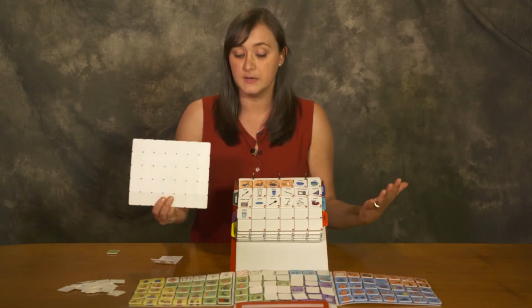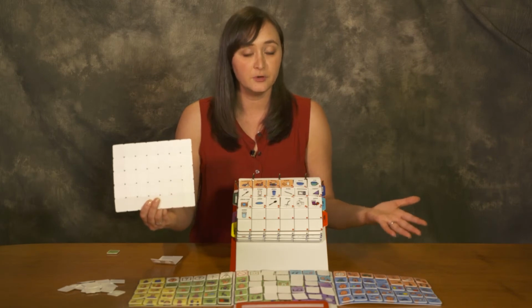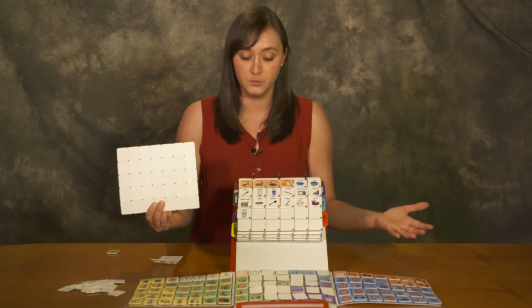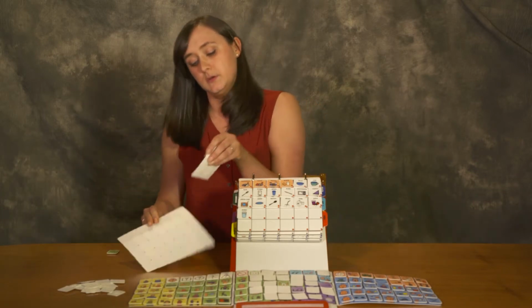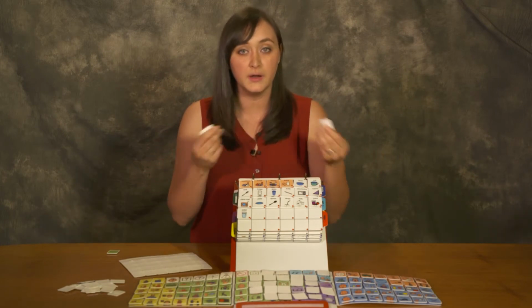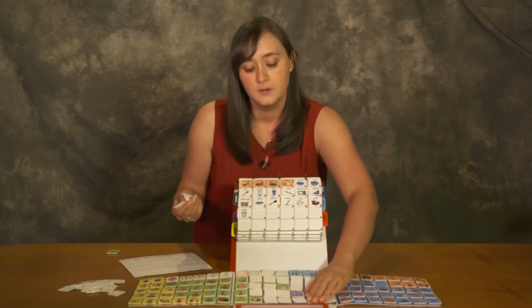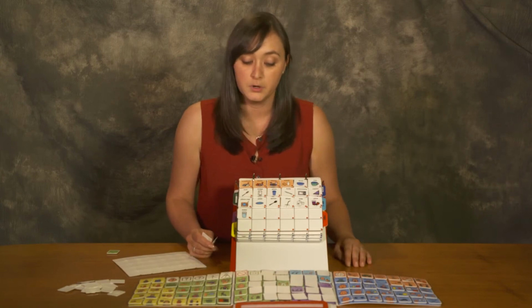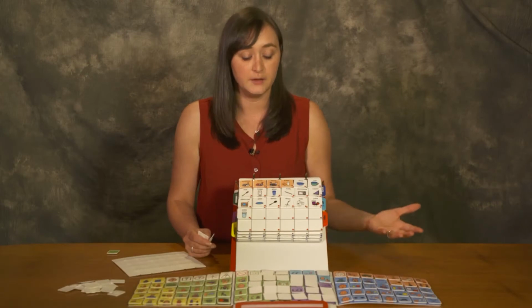So when we have masking icons, we can provide a very large, robust vocabulary set for a child without visually overwhelming an individual. So we can take masking icons provided in the kit like this, remove them, and hide as many or as little number of words as we want. So you can see that I've covered a variety of words in the center panel. I have the word open, and that may be what I'm focusing on with that child.